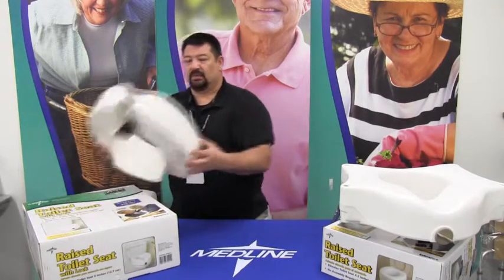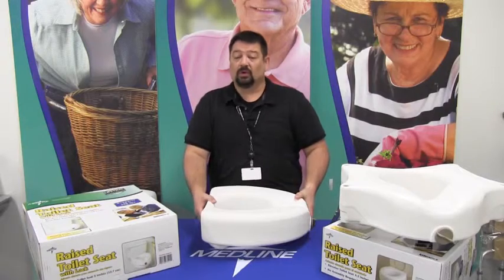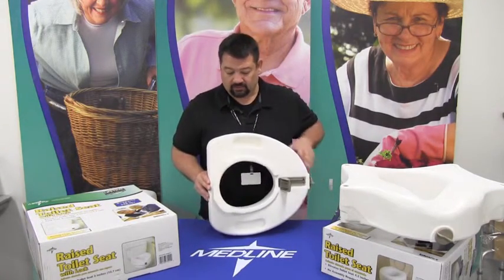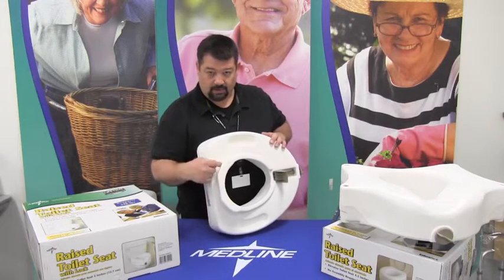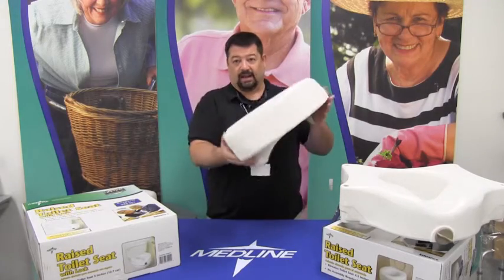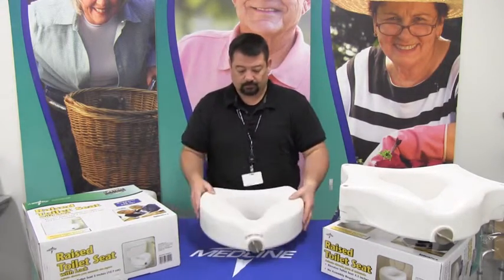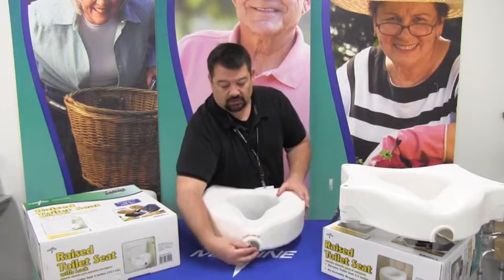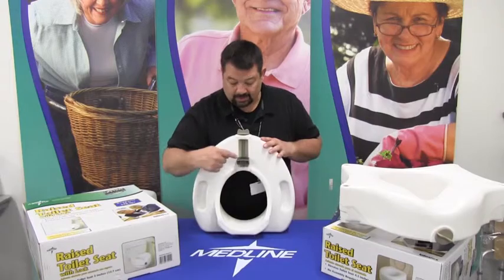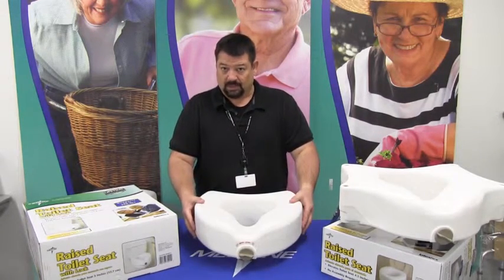The second version is the locking commode. This particular version, as a rule, will require you to take the seat and lid off. The way it works is that you have a lip here, you have a clamp here, a jaw. What you do is put it in at an angle onto the porcelain and let it set down. Once it's in place, you simply twist this lock and it clamps the foot up against the porcelain to keep it in place, giving you a steady platform.